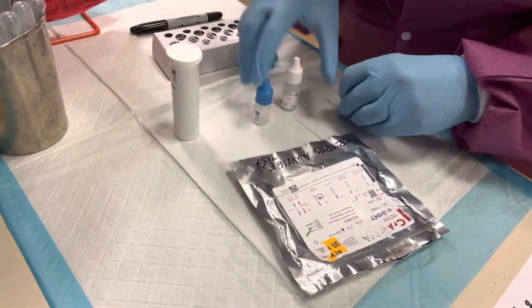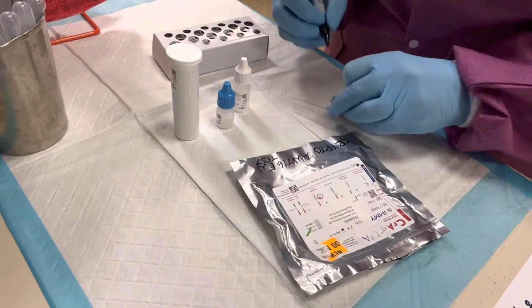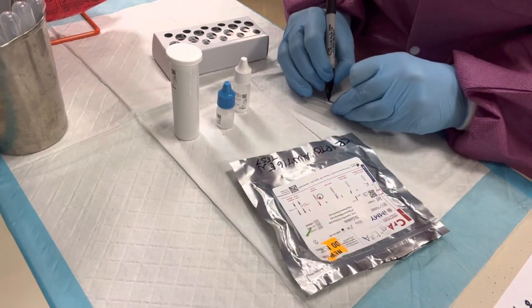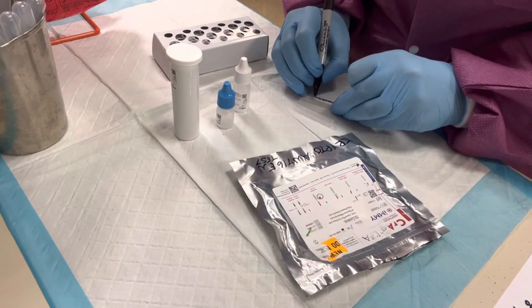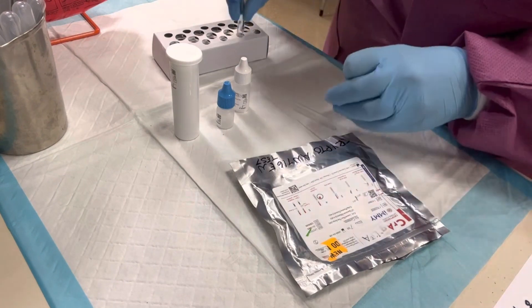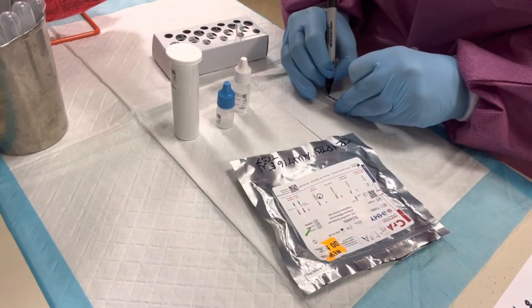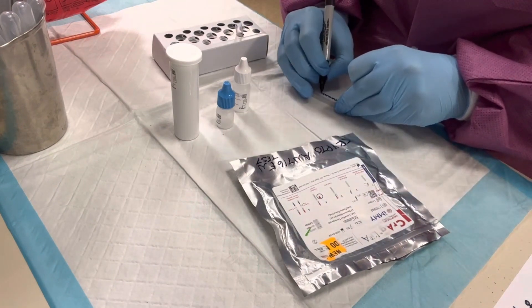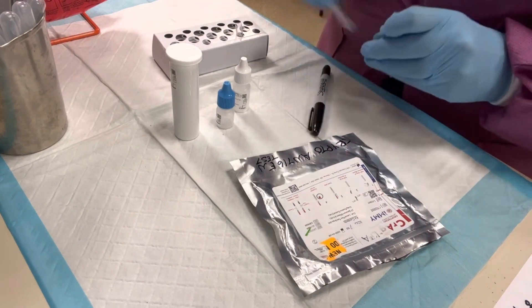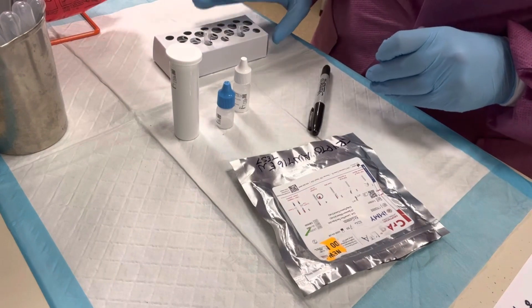First, I'm going to label my positive and negative controls. This one is the positive — I'll put that here — and this one is the negative. So negative over here, positive over here.